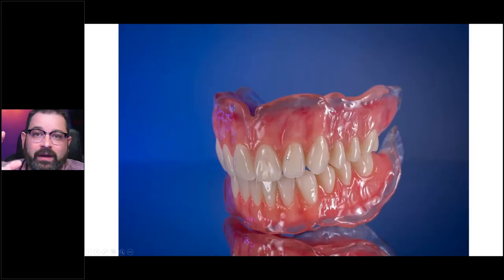And if we go further down, where you have something made completely analog — where you just process the denture with acrylic, and then do a manual cut back and lay the colors in by hand — it's still pretty much the same principles. It's just that the reduction is a little bit different, and the post-processing can be a bit different as well.